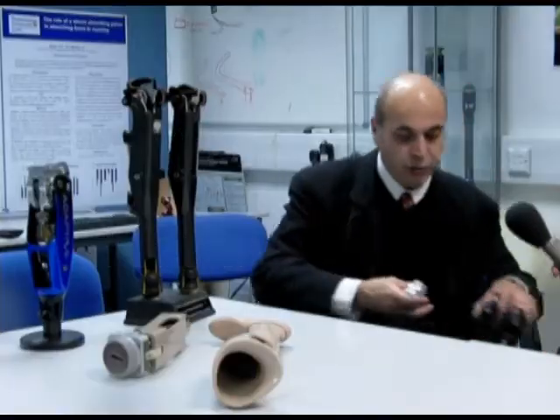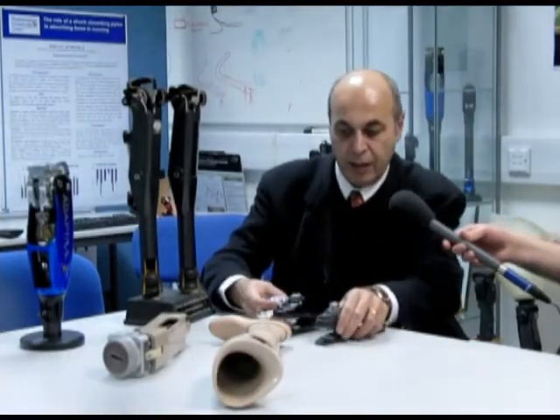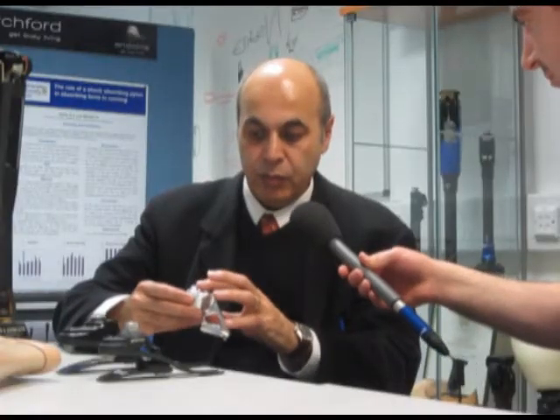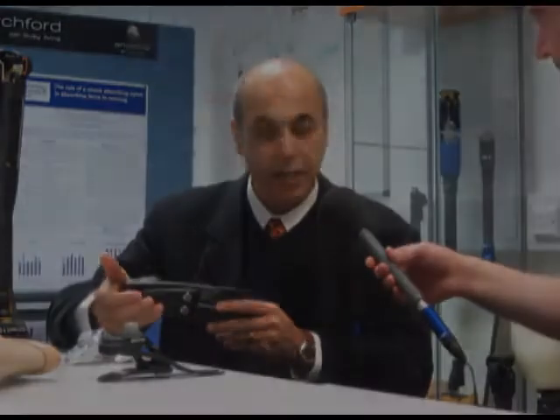There are three elements of the ankle. First is the ankle joint itself, which can provide a degree of motion. Then we have the toe springs, which provide the energy-absorbing part of the foot in terms of the push-off phase. And then we have the heel part, which is effectively the shock-absorbing part of the foot action in terms of the collision of the foot to the ground.